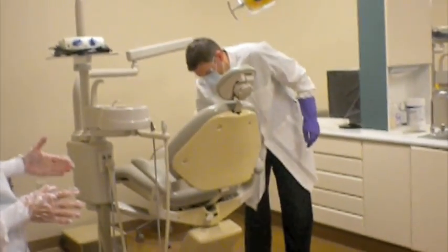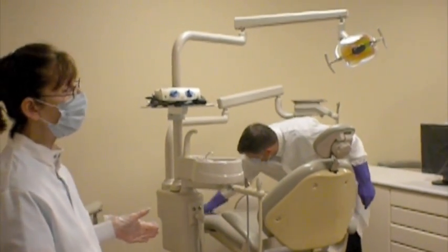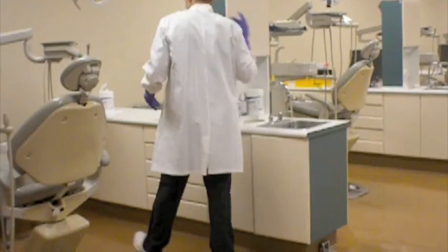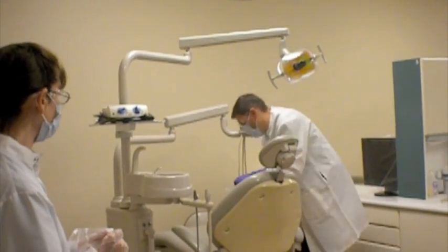When he's done with that, he will then complete it over the plastic, and once he's wiped that plastic where the patient's feet rest, he will discard that wipe because it is a very dirty area where shoes go. Get a new wipe, and he'll begin wiping the operator's stool.